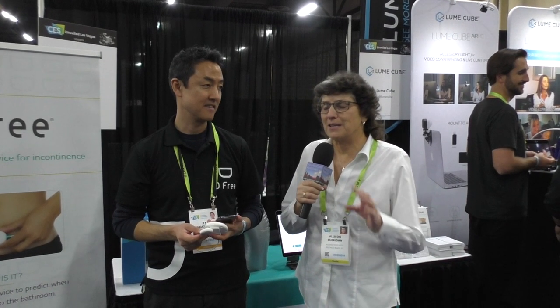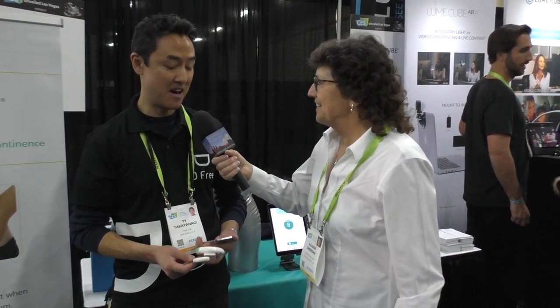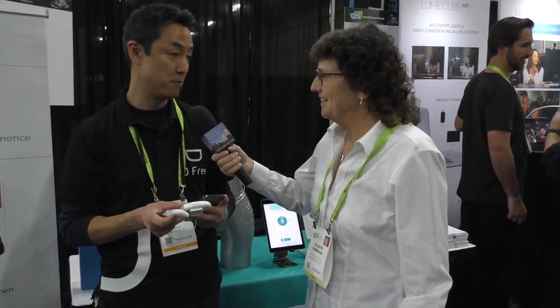I get a lot of press releases, and one of the best ones that really caught my attention was the marketing material for a product called DFree from a company called Triple W. I'm here with Tai Takayanagi and we're going to talk about DFree. I think this is a really interesting product — maybe an embarrassing product — but really interesting.